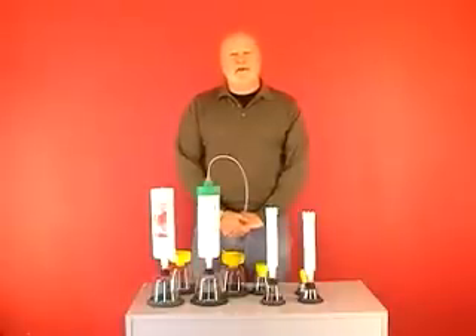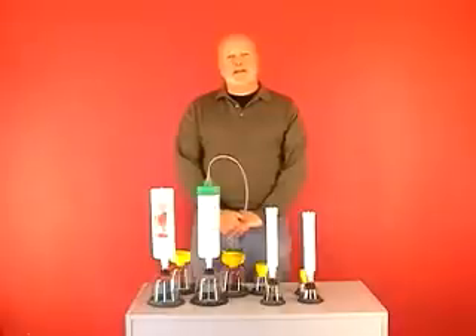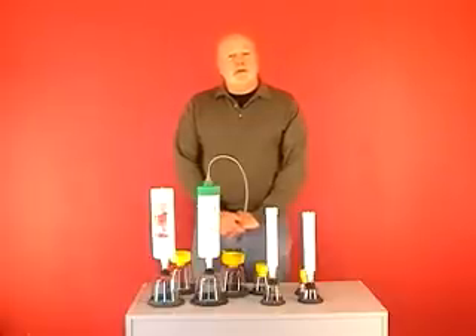Hello, I'm Richard McCulloch and I'm here to demonstrate the use of the patented McCulloch medical resuscitators. The McCulloch medical animal resuscitators are the only scientifically proven animal resuscitators in the world. They've been trialled at universities in the US, Europe and Australasia. More importantly, they're used on farms in 22 countries and have won 13 international awards.